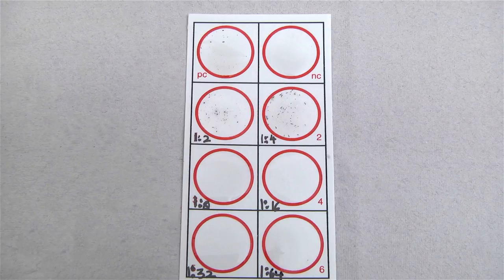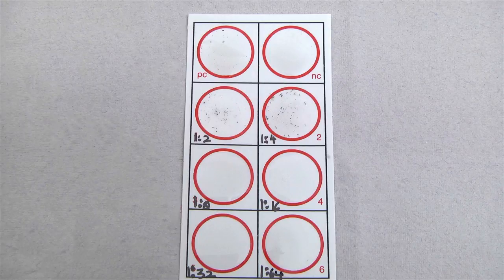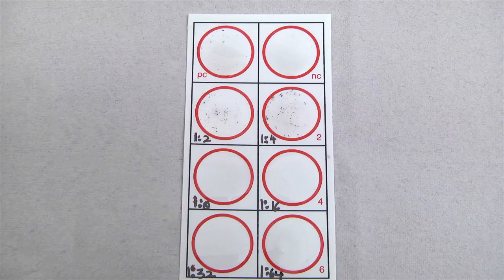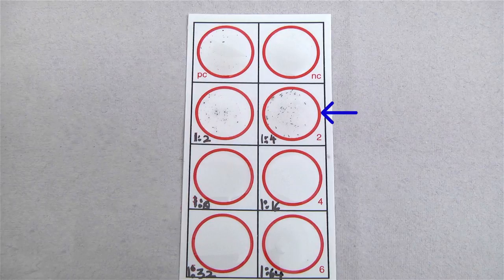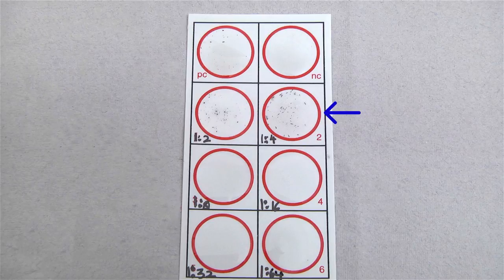The titer is reported as the reciprocal of the highest dilution showing a positive result. Since the highest dilution giving flocculation in this experiment is 1 in 4, the titer of the patient for antilipoidal antibodies is 4.